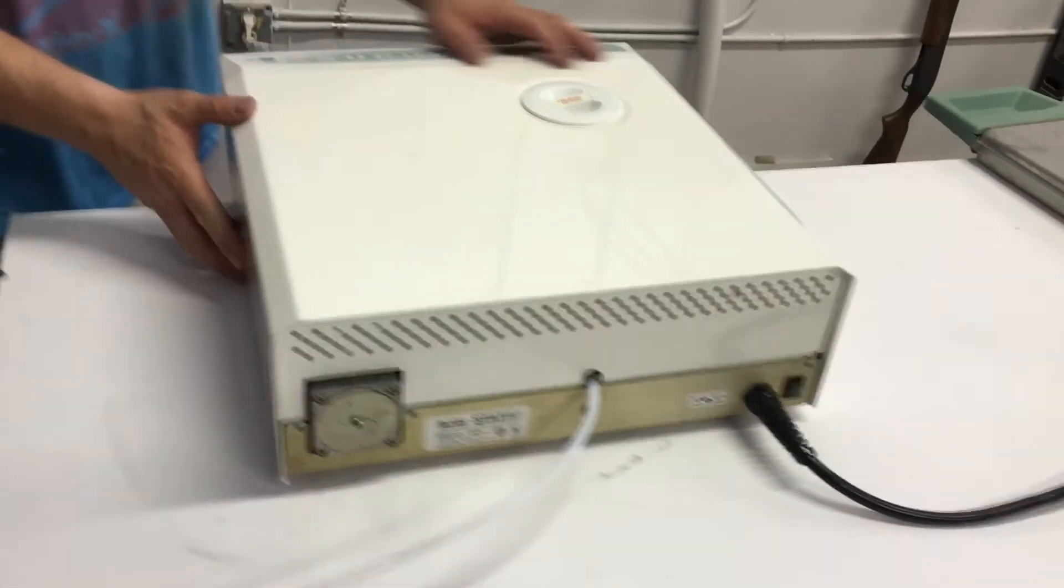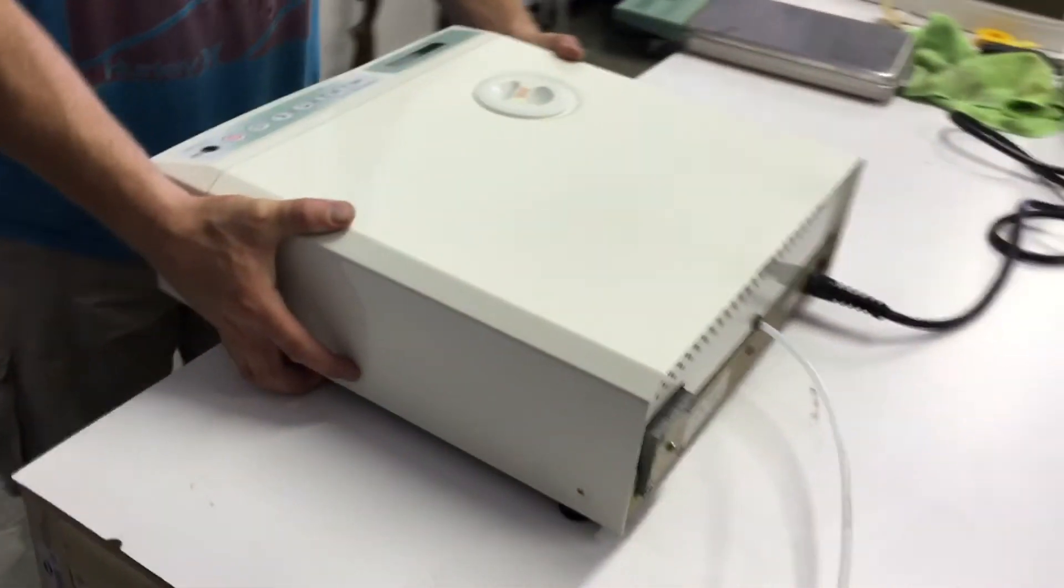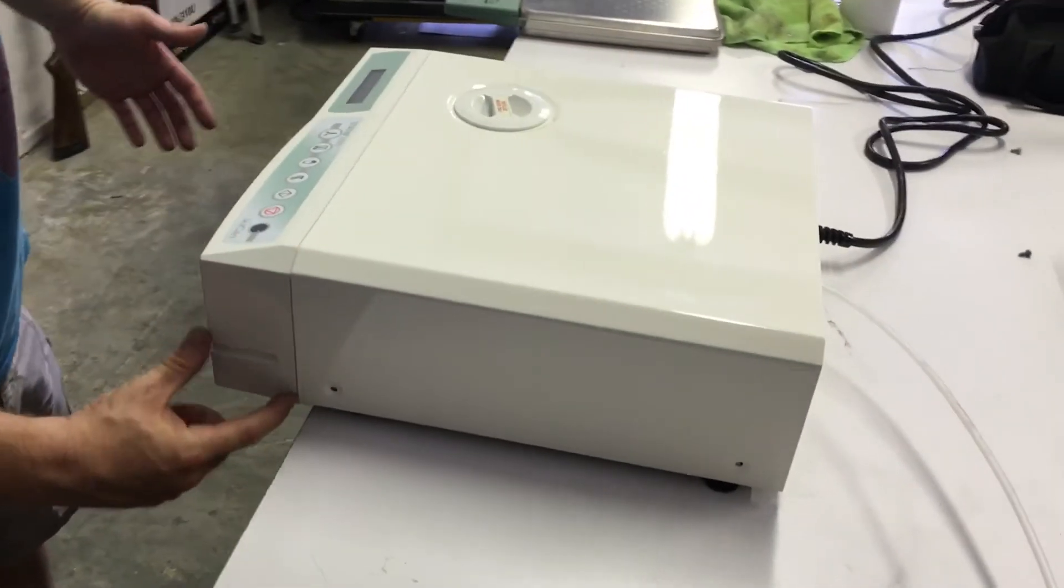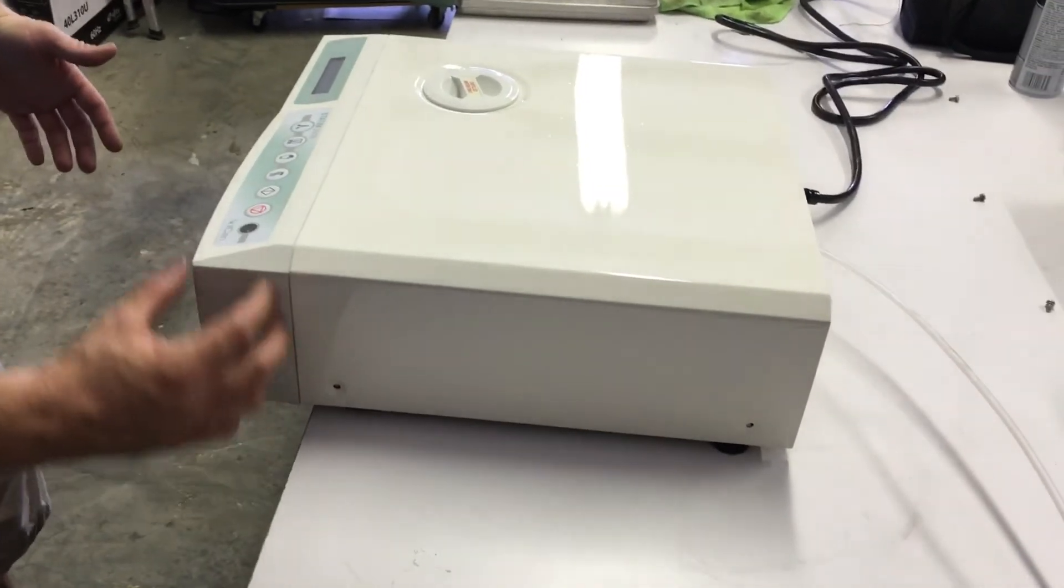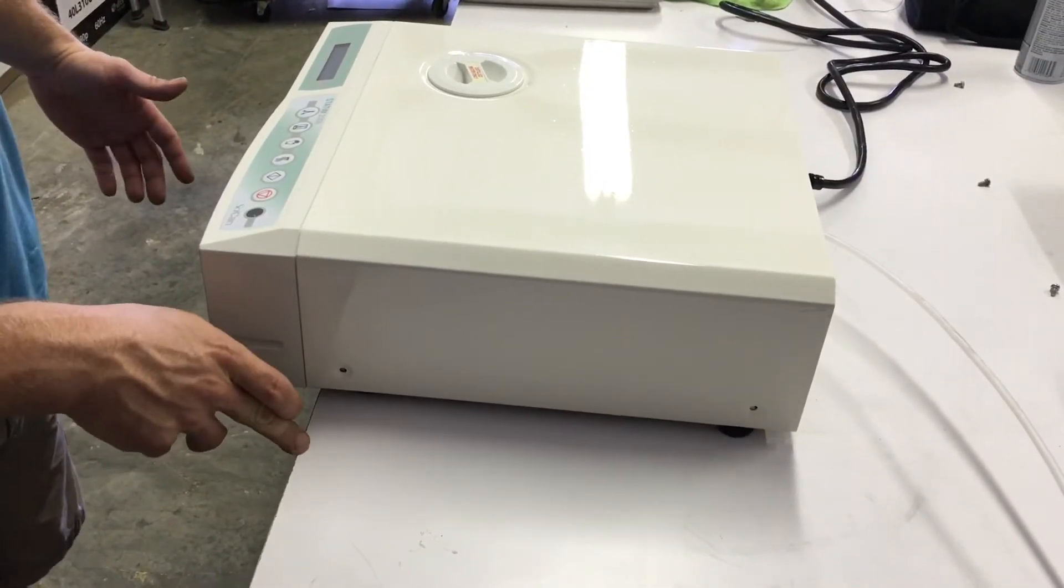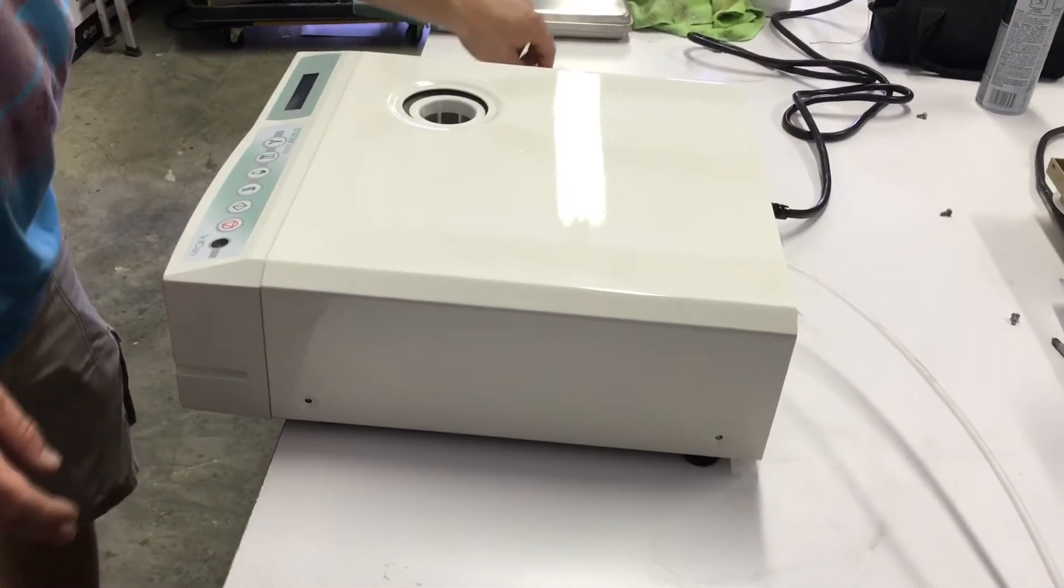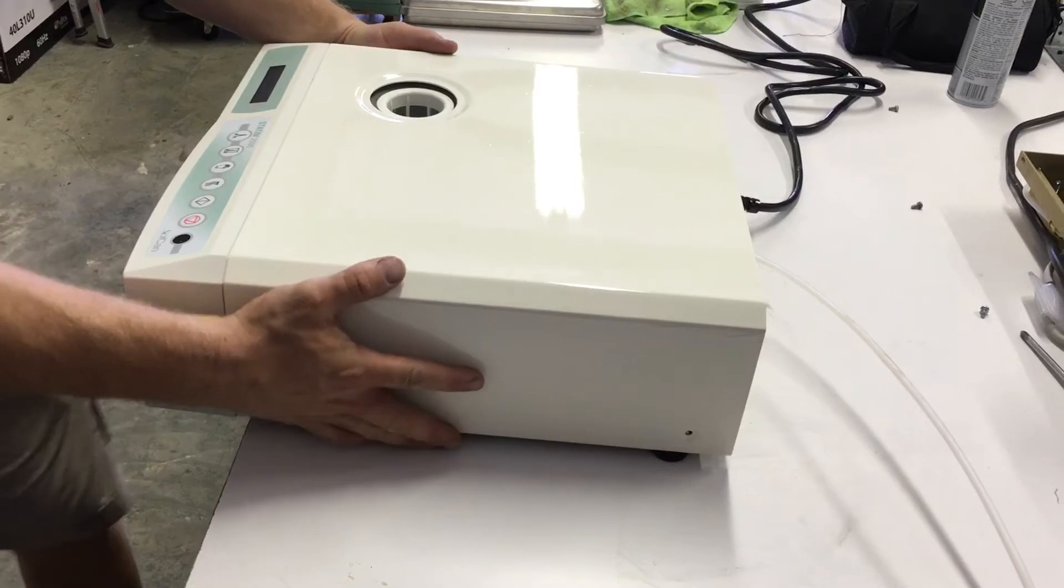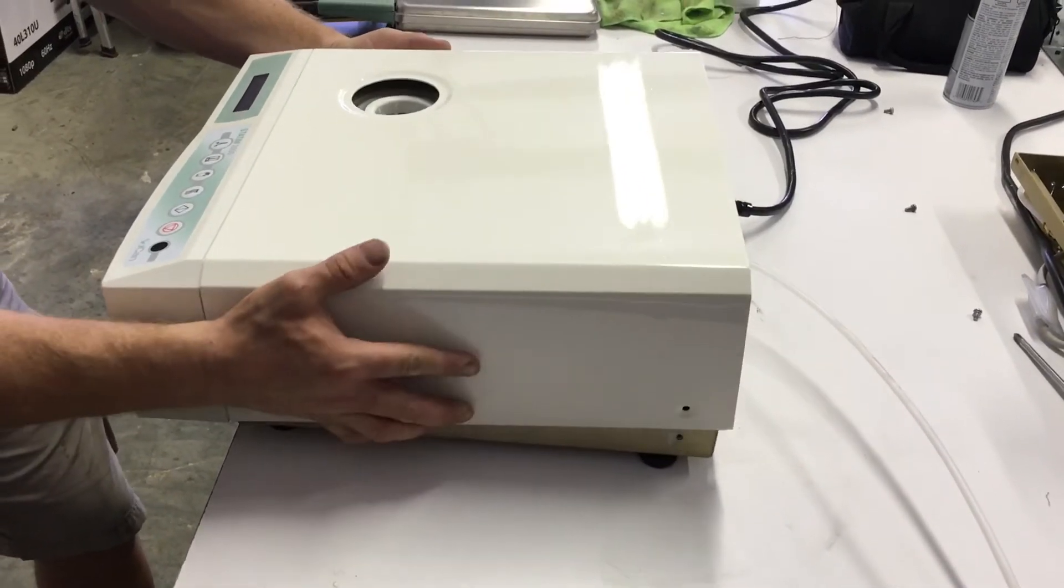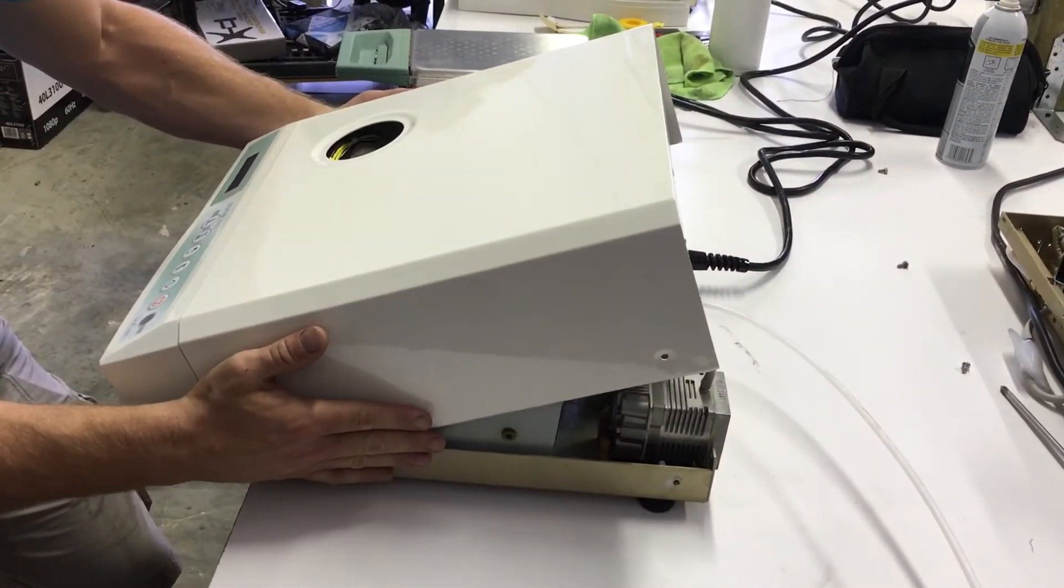Okay, now you're going to come to the front of the machine. You're going to make sure that the front edge, or the front hood, is hanging off the edge of the table. You're going to take your hands and tip the back end up first.